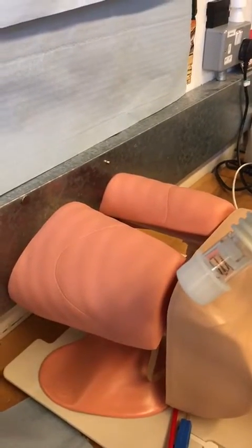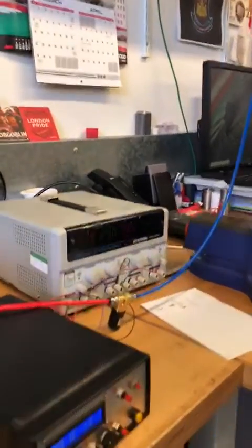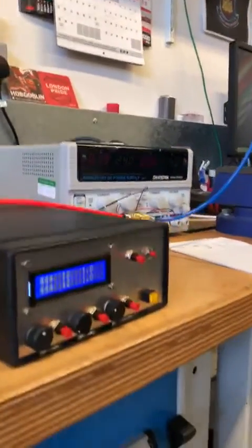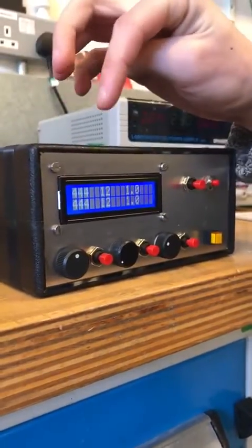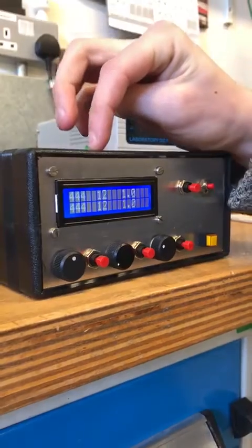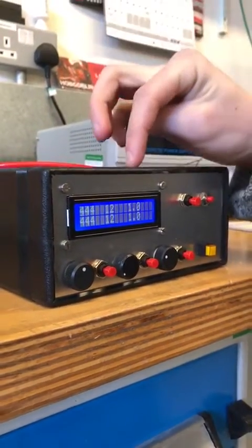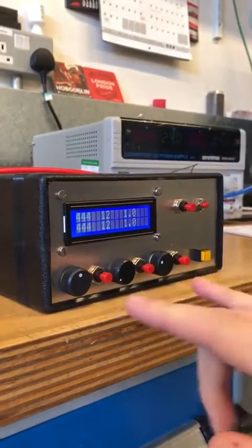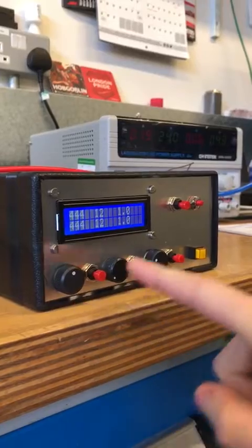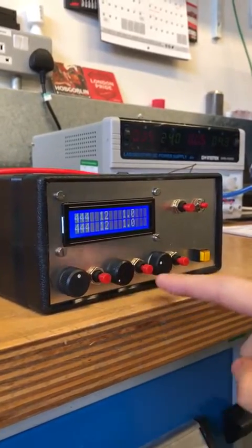A primary care practitioner has some very simple options for controlling this. There are three key parameters they're interested in: the tidal volume, the respiratory rate in breaths per minute, and the I to E ratio — respectively controlled by these three knobs and set by these three buttons.